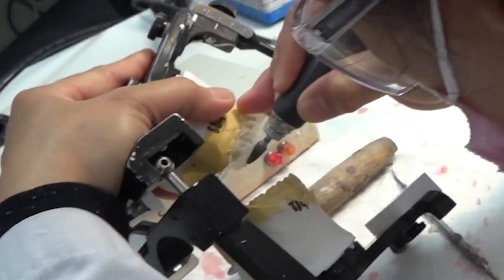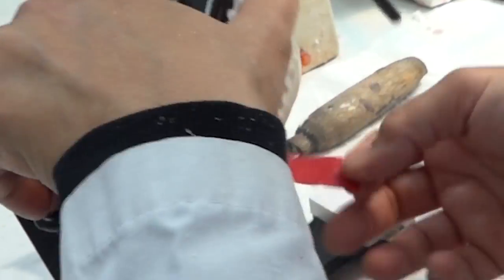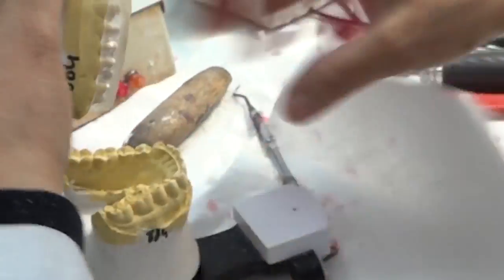Once fit is good, check in articulator to adjust occlusion. Fine-tune occlusion using articulating paper.